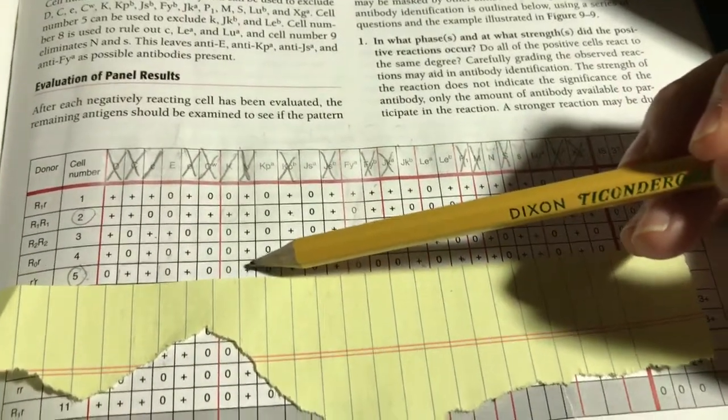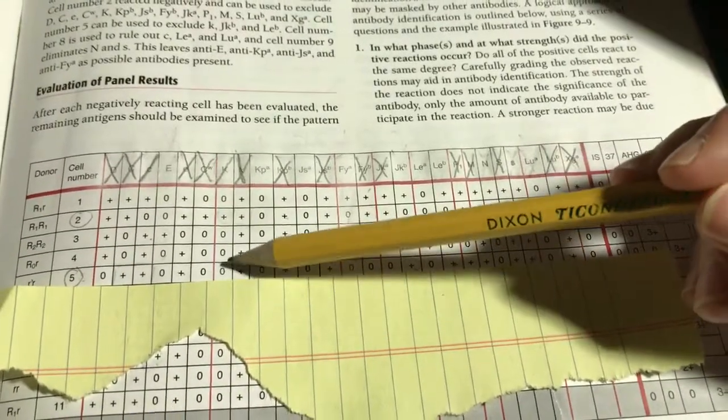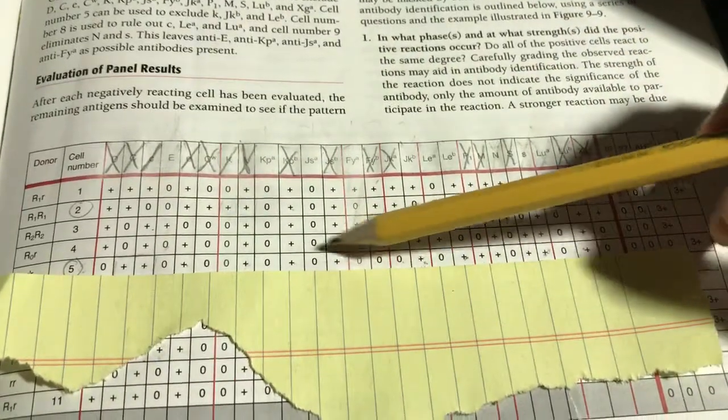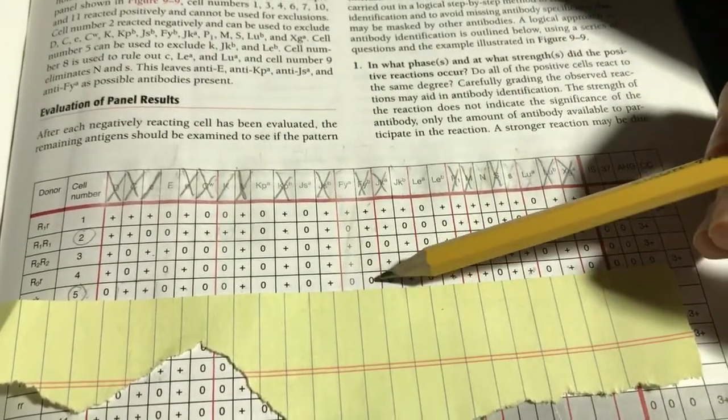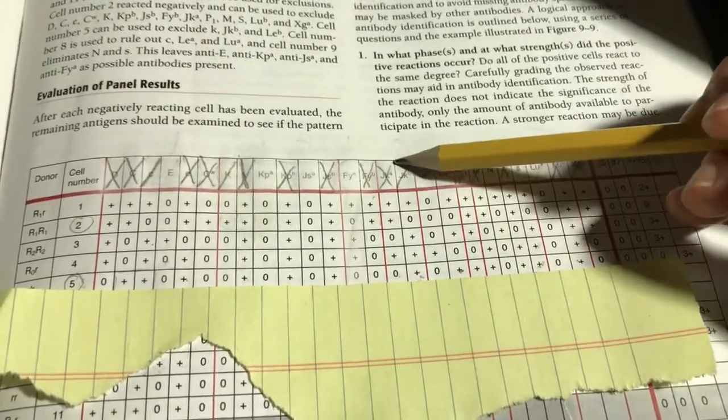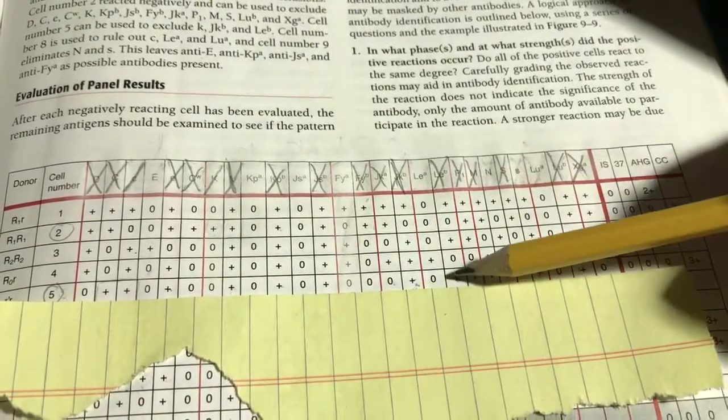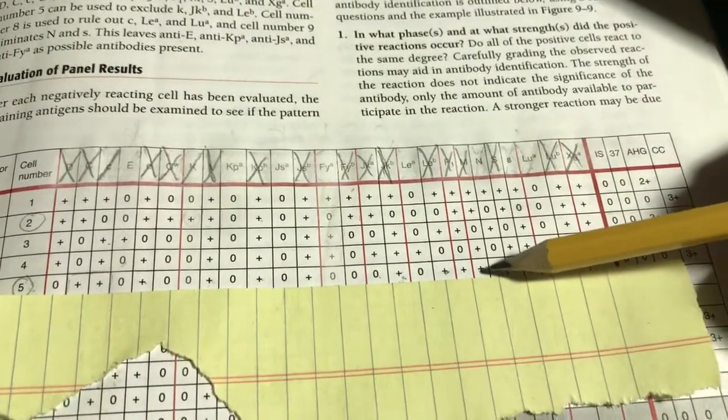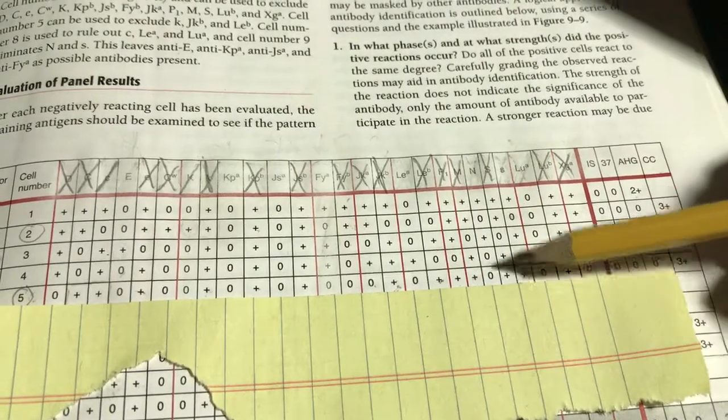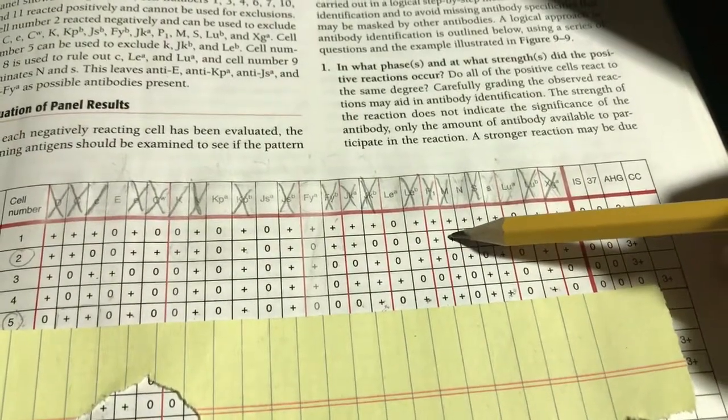As I start filling this in, you can notice that I'm starting to fill up in here. Don't start skipping around and make a mistake. Probably, most likely, little K is present homozygously here. It's as strong as it can be, so I can actually cross it off completely. If it was heterozygously expressed, I still could, because it's the second time I will have seen it.